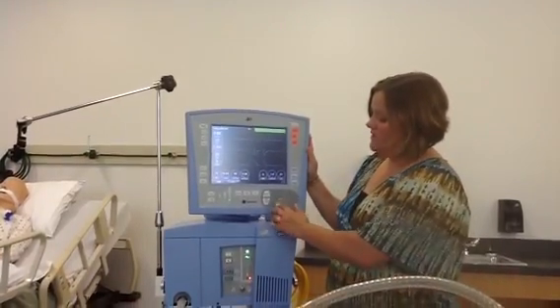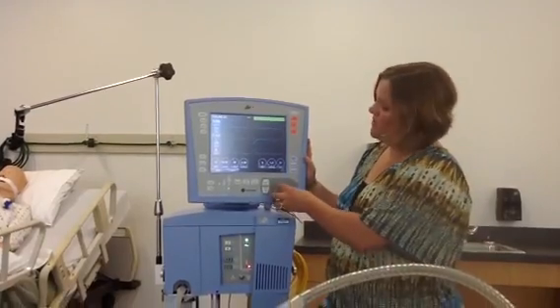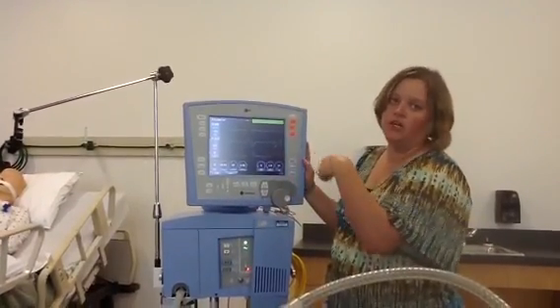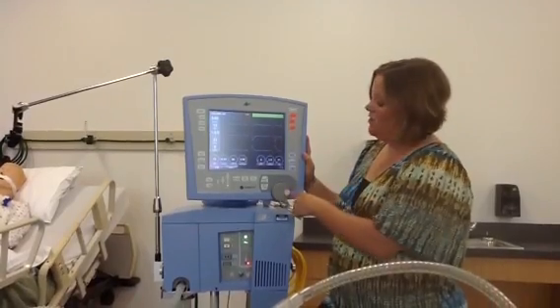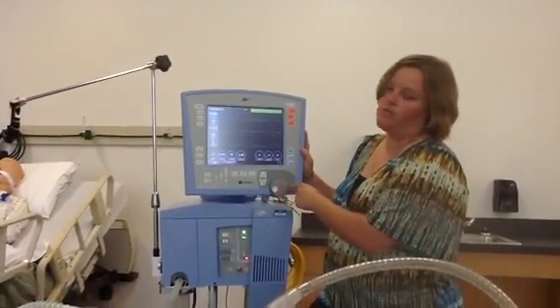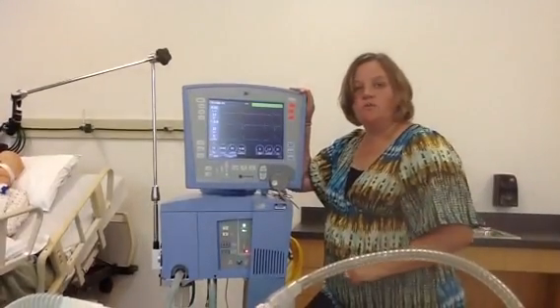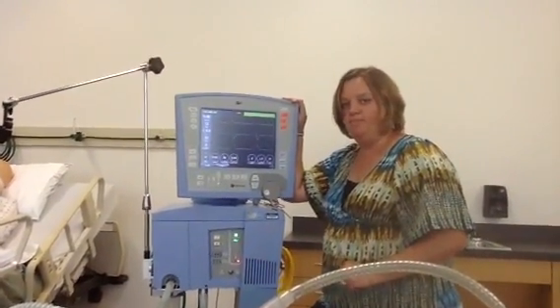The last item I want to highlight is the turn knob. Anytime you're touching and turning, you then use this turn knob to accept. I hope you've enjoyed this video. Thank you for your time. Have a great day.